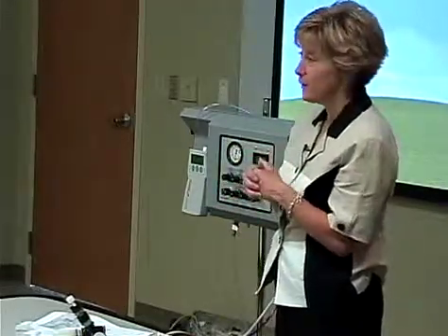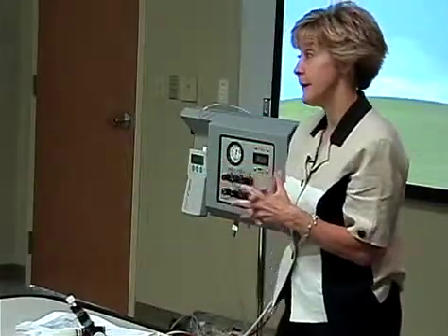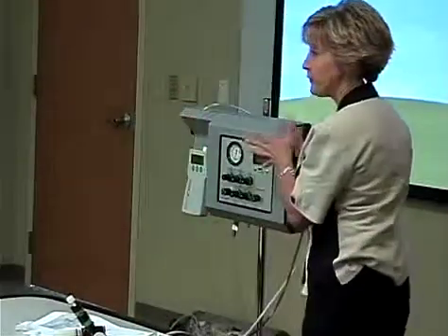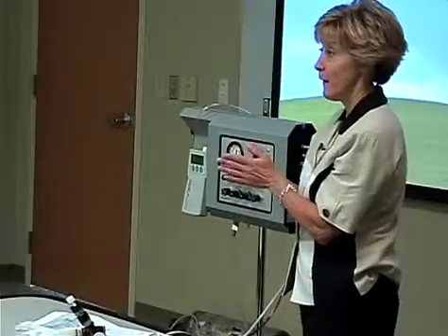And so when we come into the units, they say, what's your amplitude? Well, I can't tell you my amplitude. You're going to have to look at it and move this baby over. That was a challenge at first, because people want numbers. And the teams that I've gone and talked to who are used to the Sensormedics, they really struggle with this device because they want numbers, and you can't have numbers. That's why it was easy for us, because we didn't know any better.